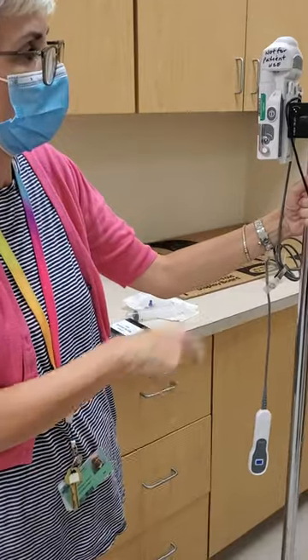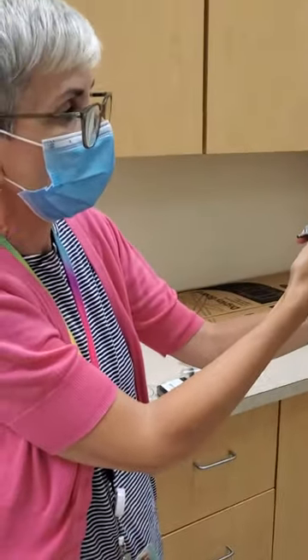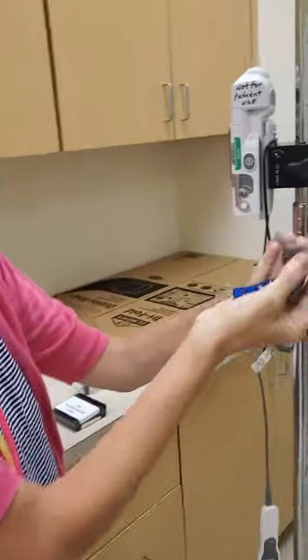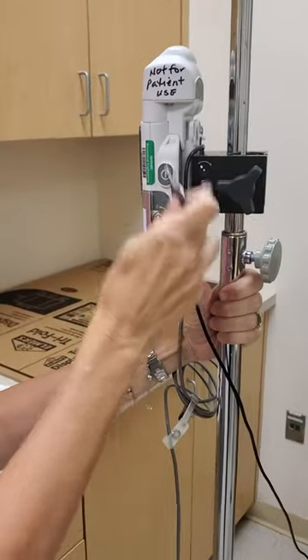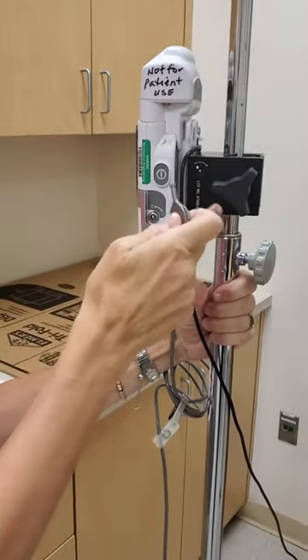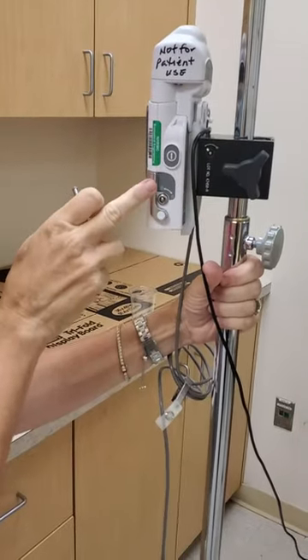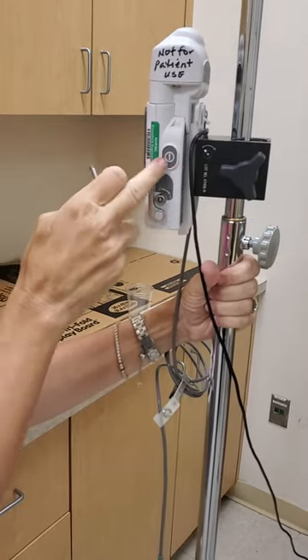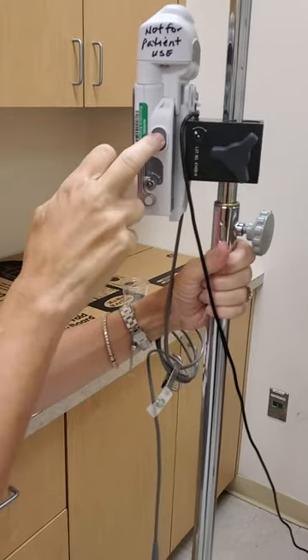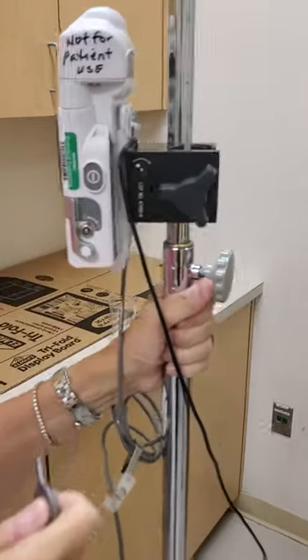First, I want to show you the side where you have the capability to take the key and lock this to the pole. On this side you also have the on-off button, so I'm going to press that and turn on the pump.